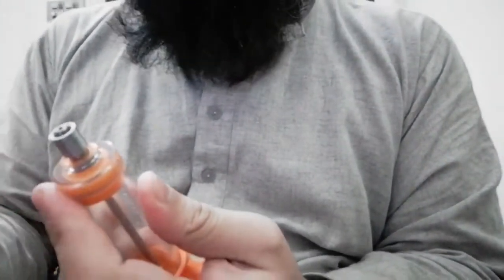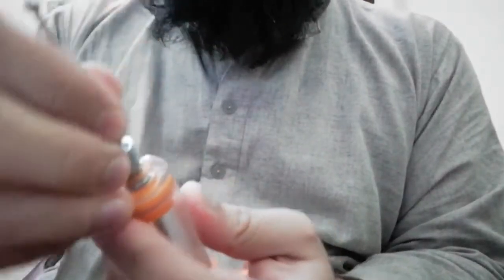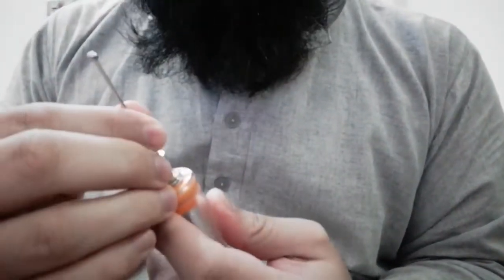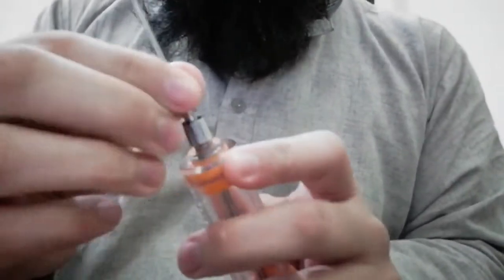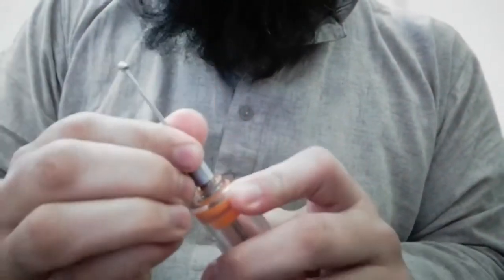Now the right way is to press the needle on the syringe with force, not gently, and rotate the needle. Now the needle is fitted as it should have been done.